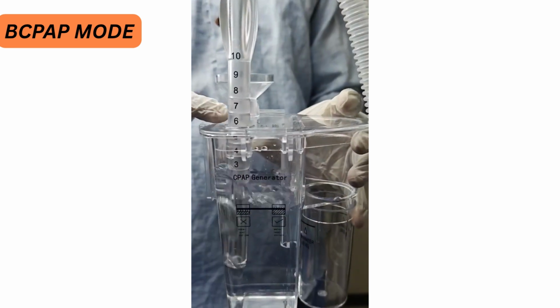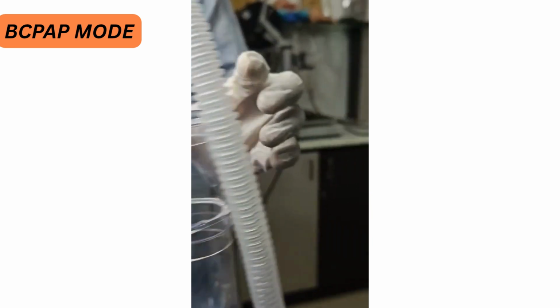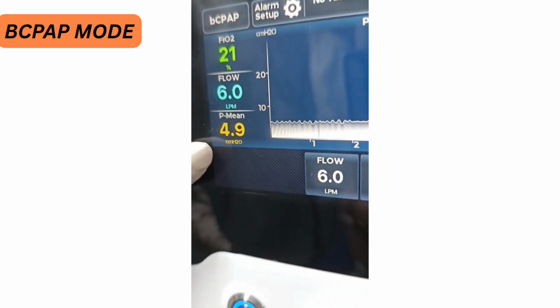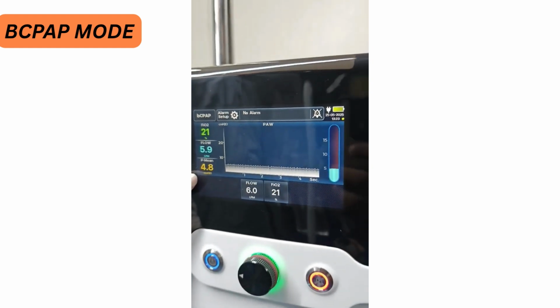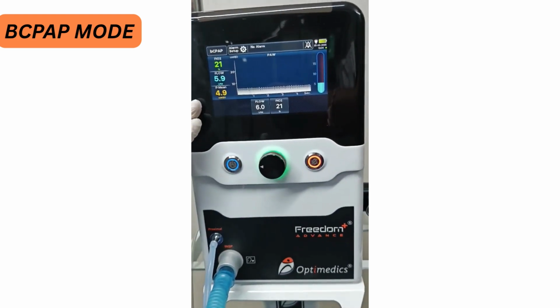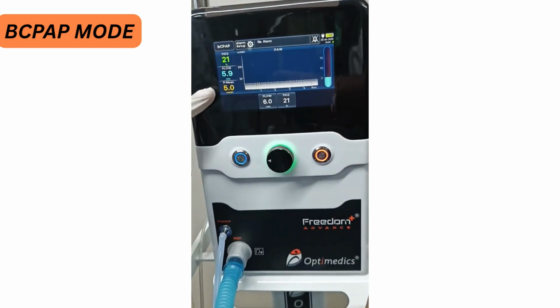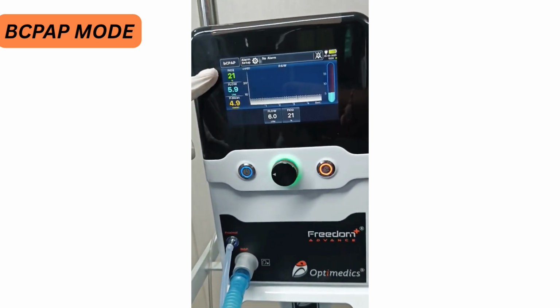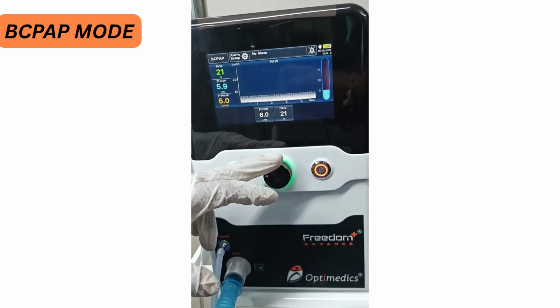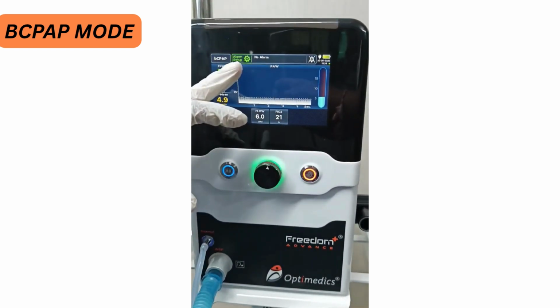As you can see, we have set the CPAP pressure 6 and the delivered CPAP pressure is 4.8, 4.9. This is because there is somewhere a leak in the circuit. This is the advanced bubble CPAP mode. As you can see, it is measuring all 3 real-time parameters like mean pressure or CPAP pressure, your flow and your FiO2. Another thing that is adding to patient safety is the alarm setup screen.